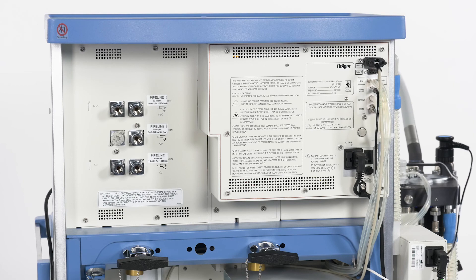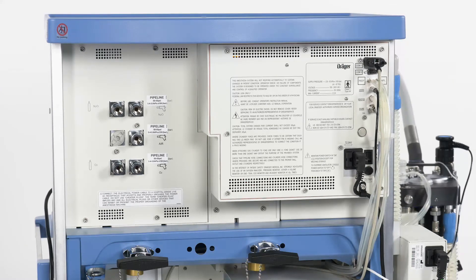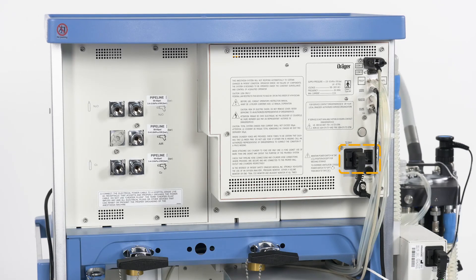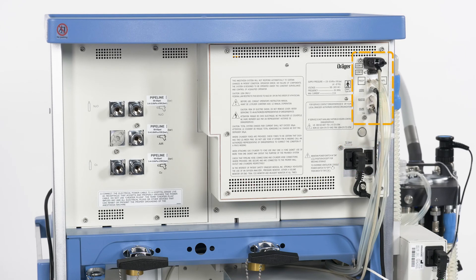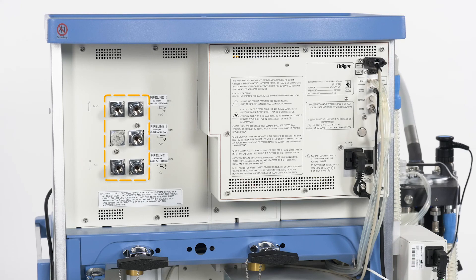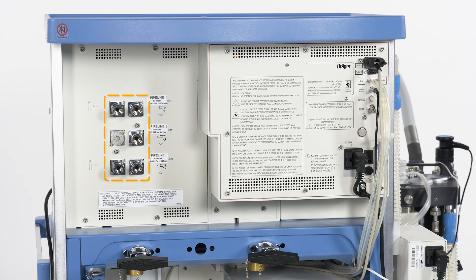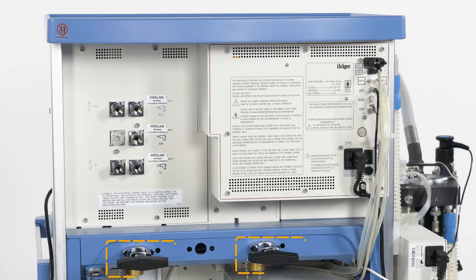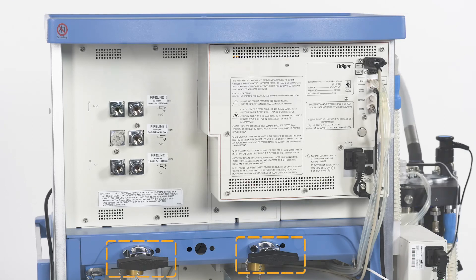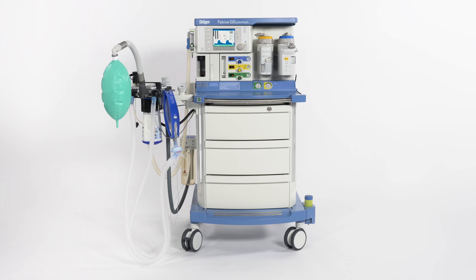Let's turn to the rear side of the anaesthesia machine. Located in the upper compartment, from the right to the left, are the mains power on-off switch and the power cable connection. Just above, you can find the communication ports and the sensor connections for the COSI. Central gas supply hoses for oxygen, air and nitrous oxide can be connected to the corresponding gas inlets. In the rear centre of the Fabius GS Premium, you find the optional pin-index gas cylinder yokes. The walk around the Fabius GS Premium is now finished.